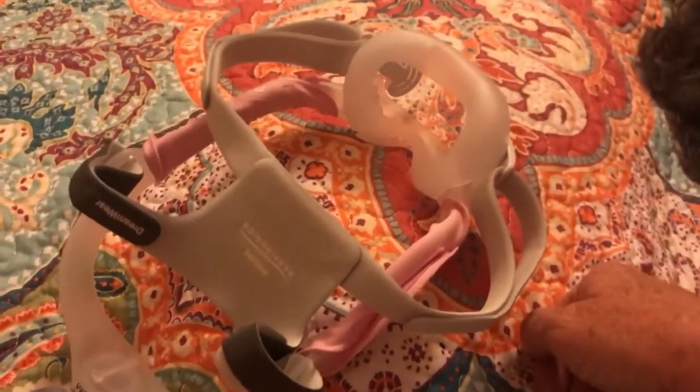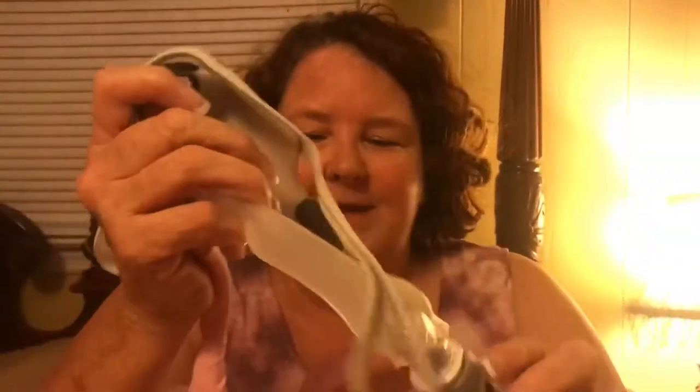We're going to give it a try. So this is my mask hooked in — this part goes over my mouth, and these come in on the sides. You can see my nose is not covered; it just sits below it. And instead of looking like a Snuffleupagus coming out of here, now I'm a Britney Spears ponytail.